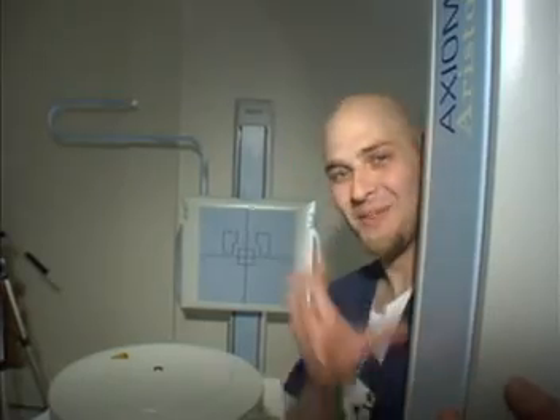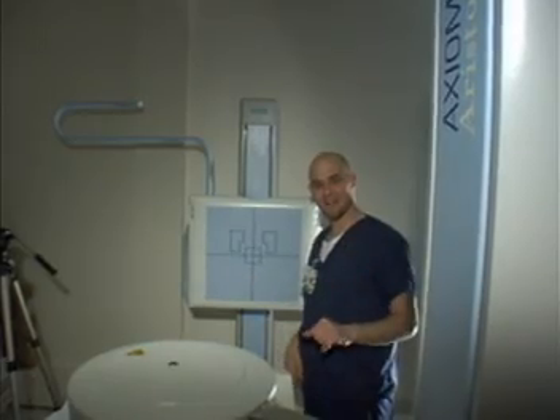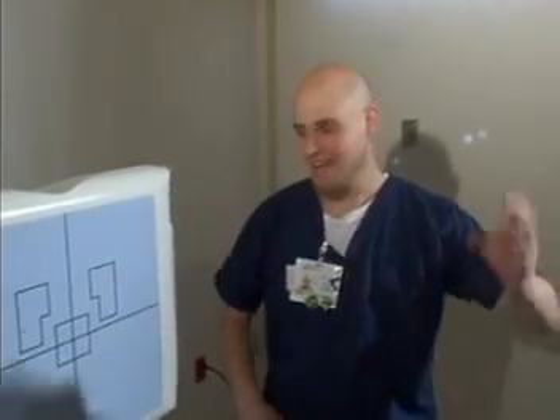This viewing station is just like many throughout the division of radiology. The new digital processor is great, and it gets even better. This right here is the future of radiology. With this, the image is taken and instantly wired to a doctor in one of the rear rooms, such as Thoracic Park. This is more efficient and quicker for the patient. Welcome to the future.